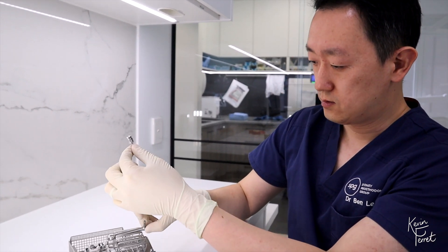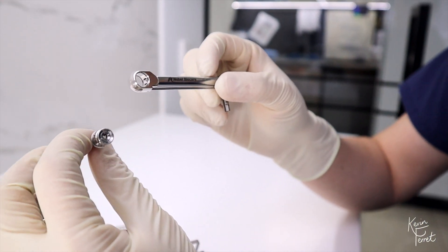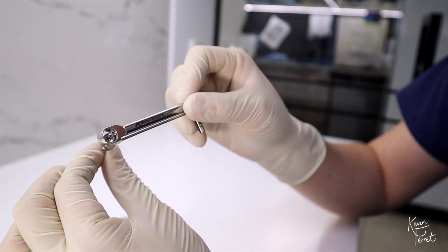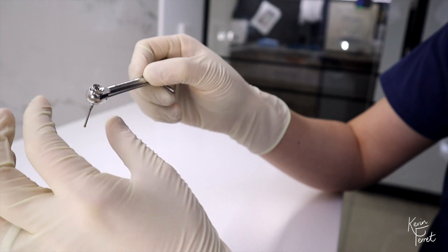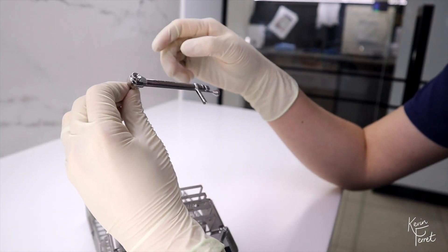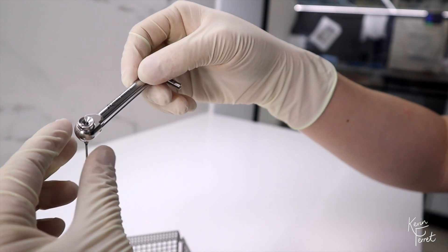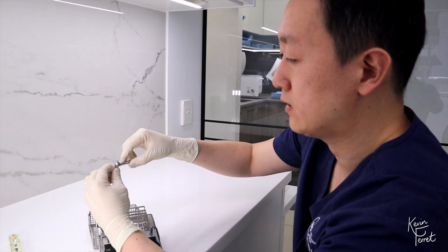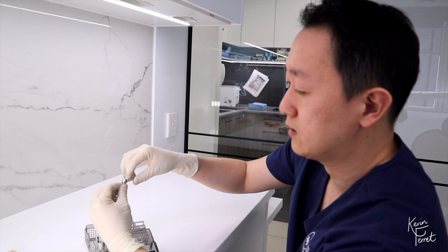To connect your torque wrench adapter into the torque wrench, make sure the Noble BioCare logo is facing you, and put this over the adapter until you hear a click. To test it, hold on to the driver. If you want to tighten things, the arrow should be towards you — you feel the pressure, and as you pull away it disengages. You can hear the click. Tighten, and it disengages.